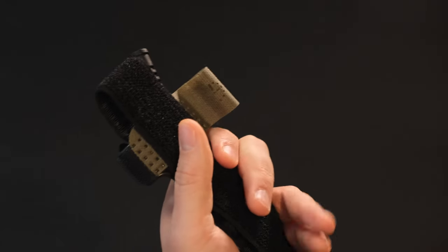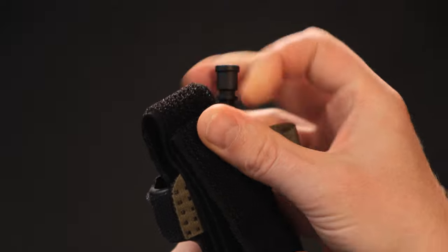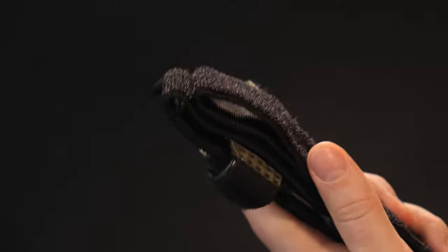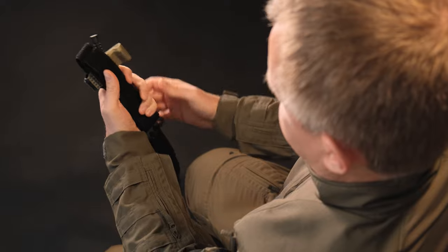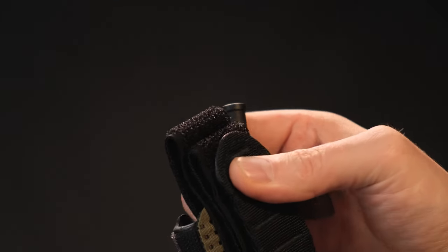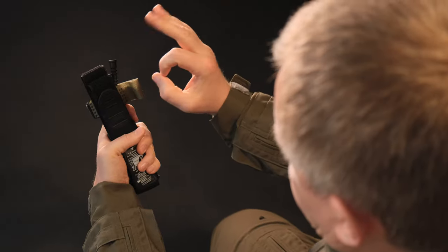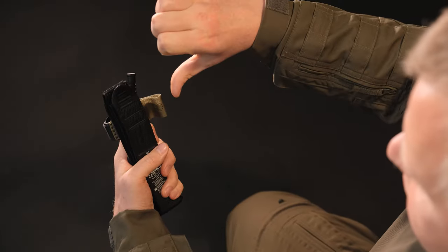Position your palm so that your little finger is at the base of the metal buckle. Form the next loop so that it is lower than the previous one. The protruding part of the first loop is the key element of the scheme. Move your fingers to the top of the second loop and slightly pull the tip of the tourniquet strap down. Form the third loop so that the tip of the tourniquet is at the level of the previous one or slightly lower — not critical, but the main thing is it should not be higher. If it is higher, the tip may stick to the first loop and the tourniquet ring can then only be opened by shaking.